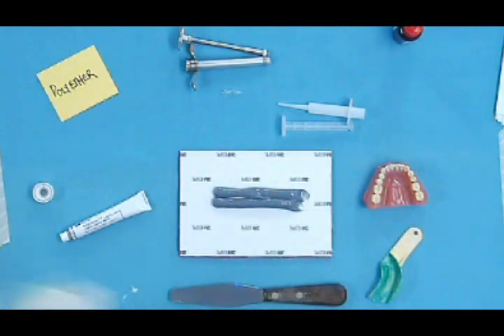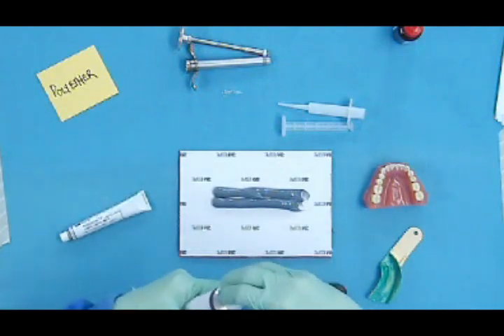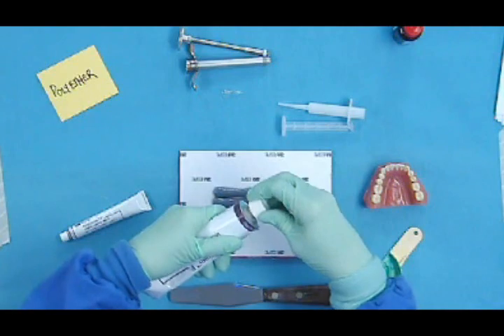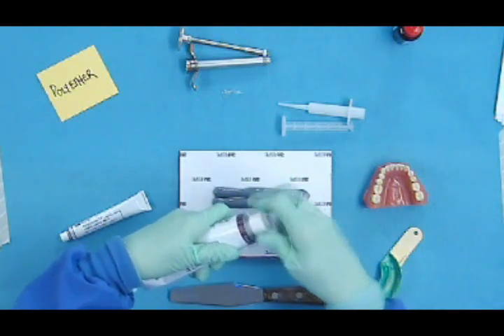You always want to make sure that you don't leave a mess for the next person. So I would wipe this off and make sure that the top is put on securely.